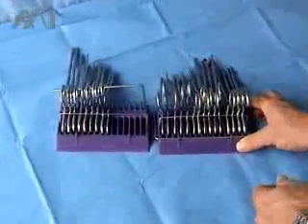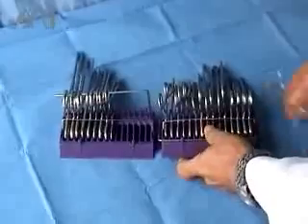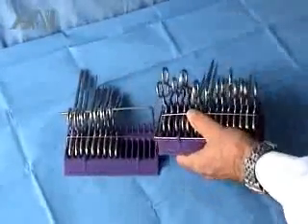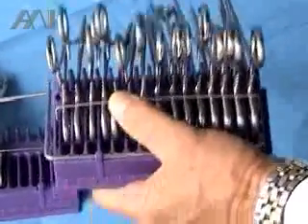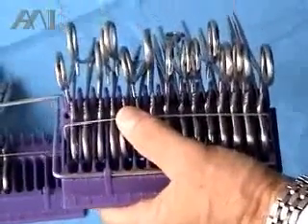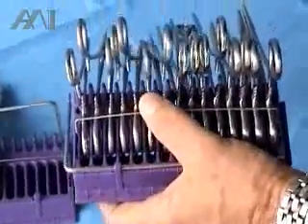Another important feature is the safety feature. If you add a sharp instrument on the rack, you always handle the instruments from the backside away from the tips, as OSHA recommends. By handling the instruments from the back side, you don't take a chance of being pricked or injured by the sharp instrument.